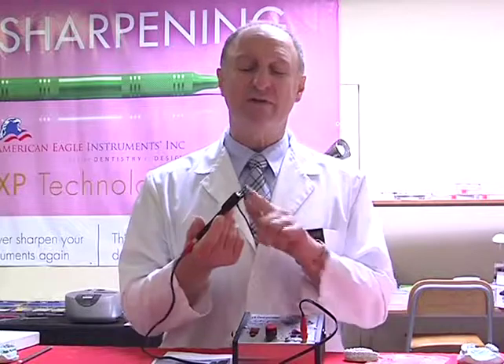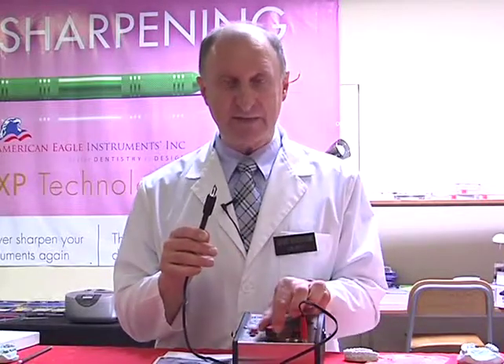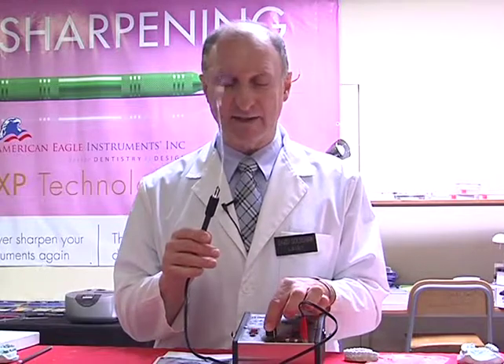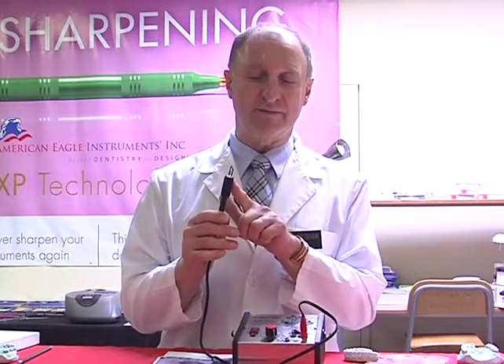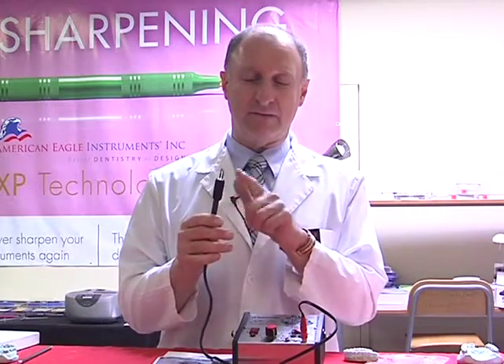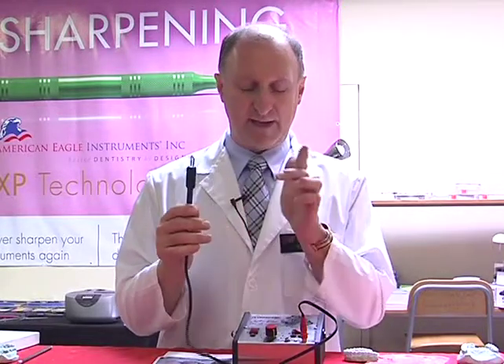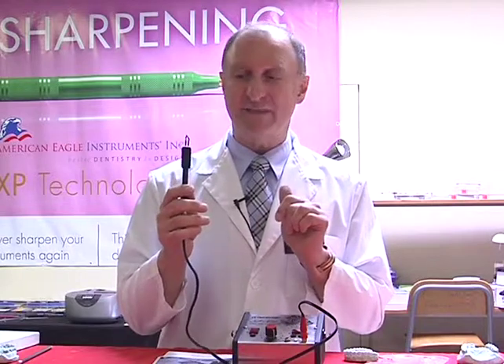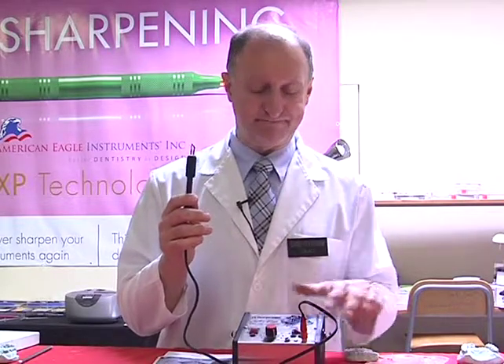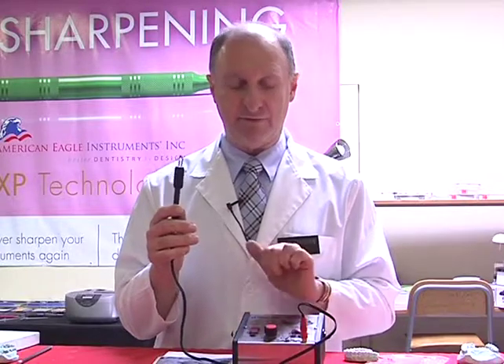If there was any residue left on the surface of the tip, what I normally do is turn this up to the full extreme of the heat, and that would just burn off any material that was caught on the end of the tip. It's a little bit like a self-cleaning oven when you raise the temperatures. So now we've got it nice and red hot. We're just making sure there's nothing left at all on the tip. At that point, our unit's ready to use for the next time around. So I can then turn down the temperature, and off.